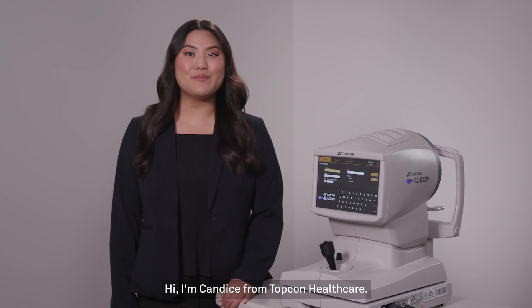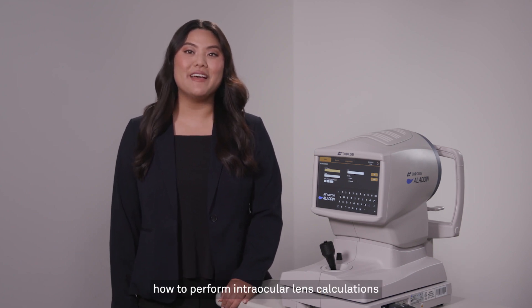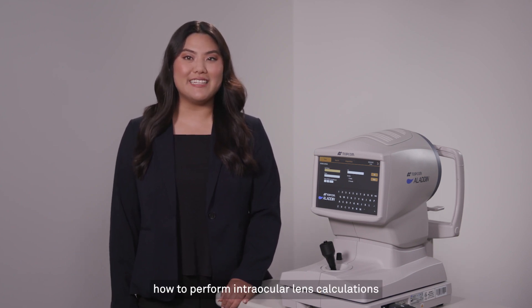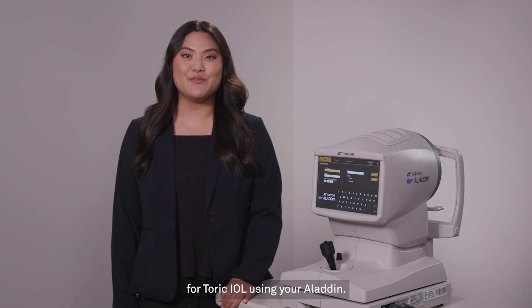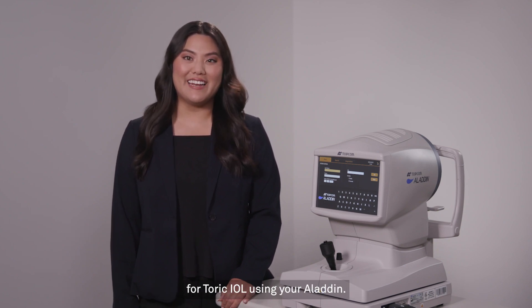Hi, I'm Candice from Topcon Healthcare. Today, I'm going to show you how to perform intraocular lens calculations for toric IOLs using your Aladdin.